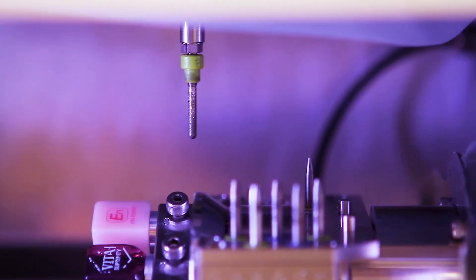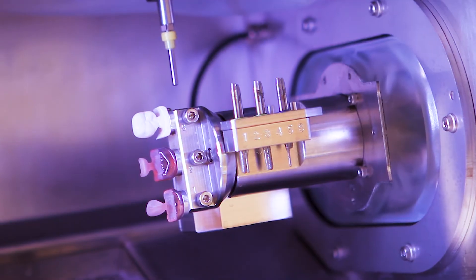So as we combine the technology provided to us by DG Shape, the support, the quality, and of course the patient experience, that's really what makes it work for us in our environment. It's fun, it's exciting, it's the future of dentistry, and we do it every day.